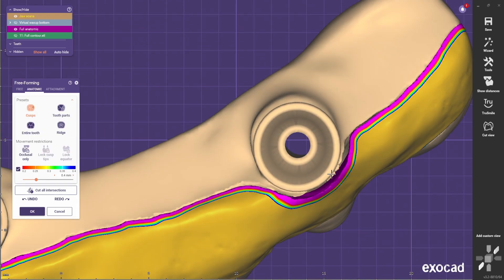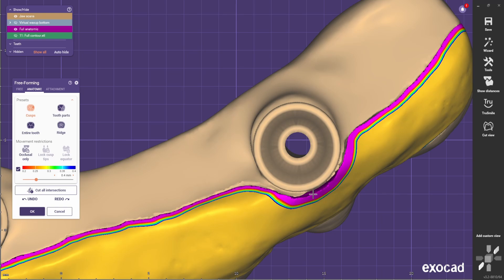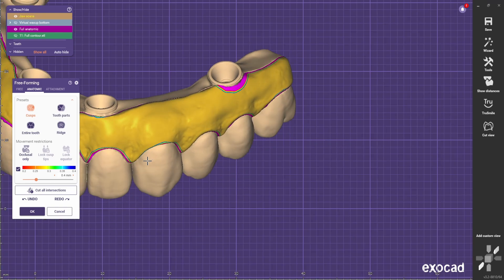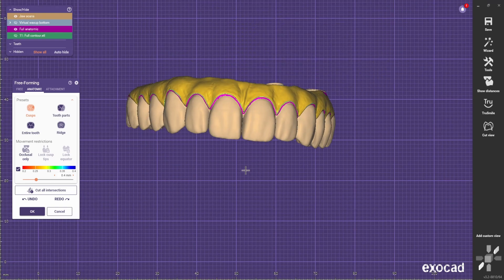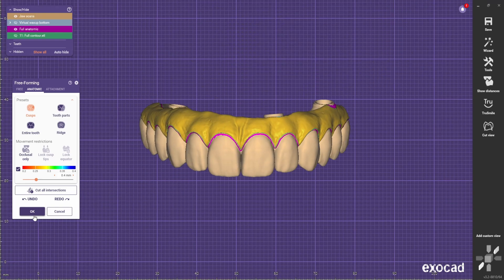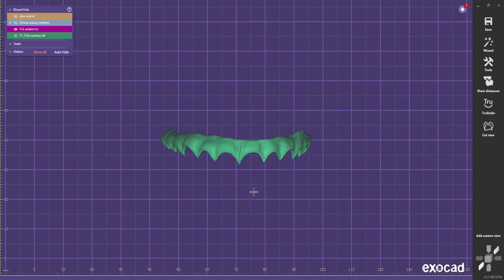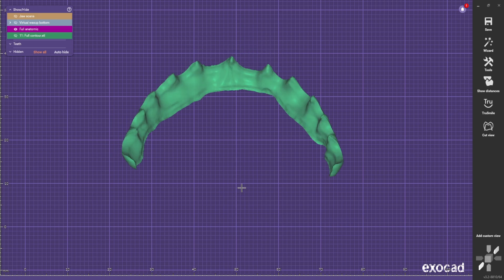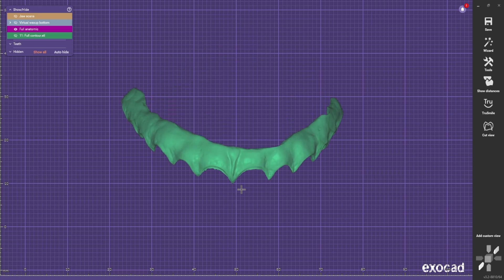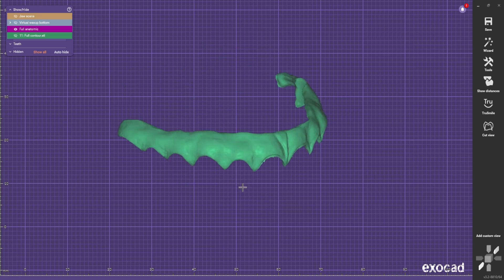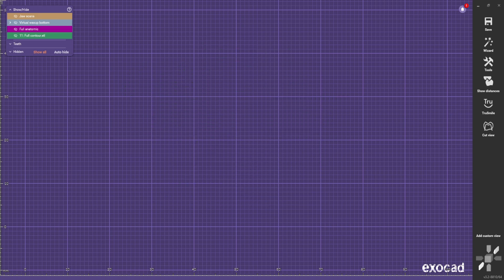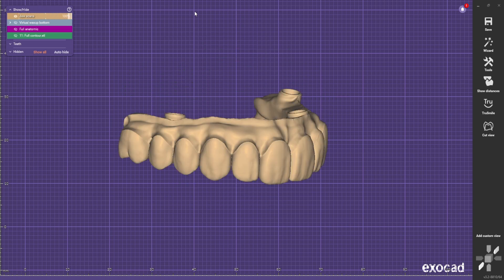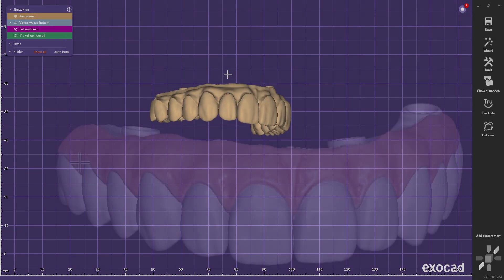So if you do your PMMAs, you should try this technique. It should be a time saver. So we go okay and now we have the full arch in two pieces. You have the gingiva part and you have the tooth part.